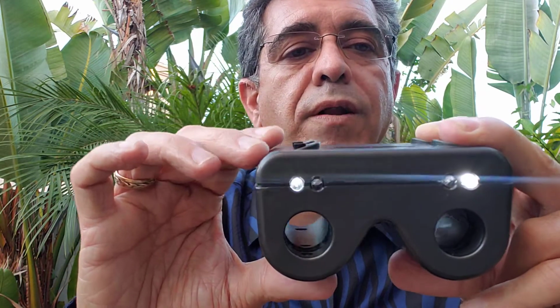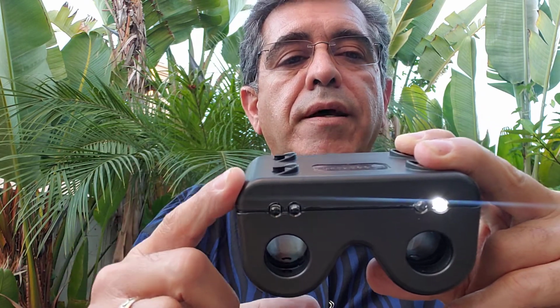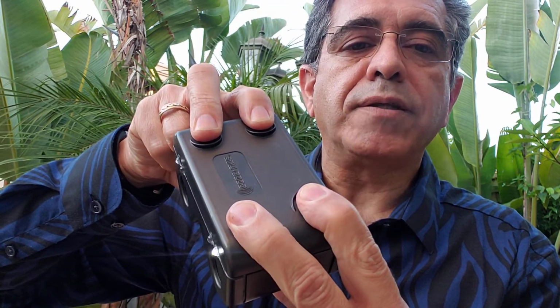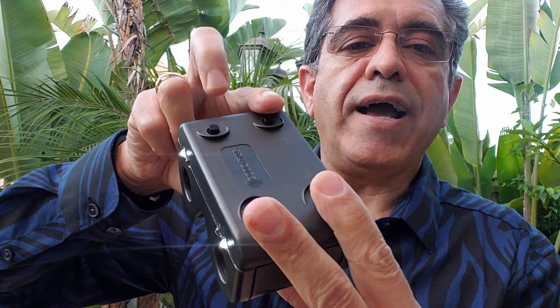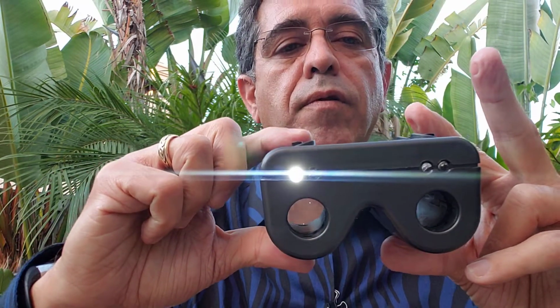And then you would say which eye was the defect in. So at this level, one light is dimmer than the other one. This is dimmer. And you can go back to the normal setting, the previous setting. If you hold all 4 buttons together, the lights flash, and then both of them are now full. So that's the full original state.